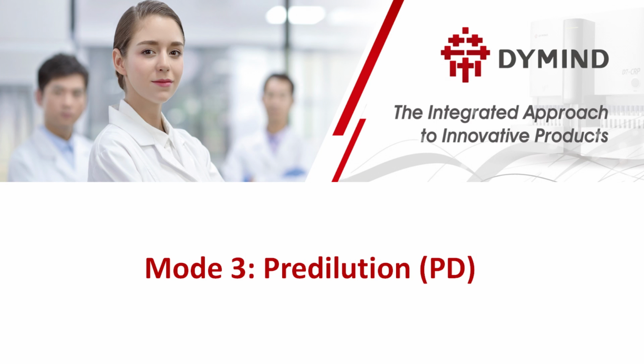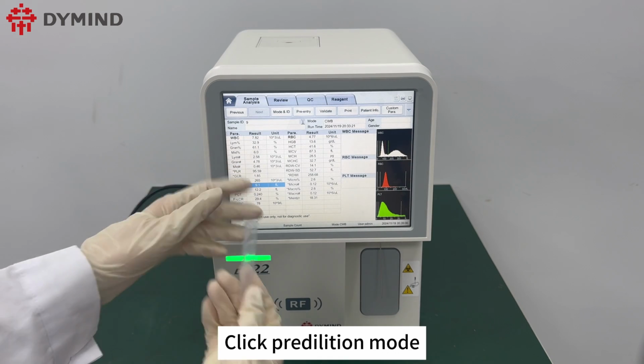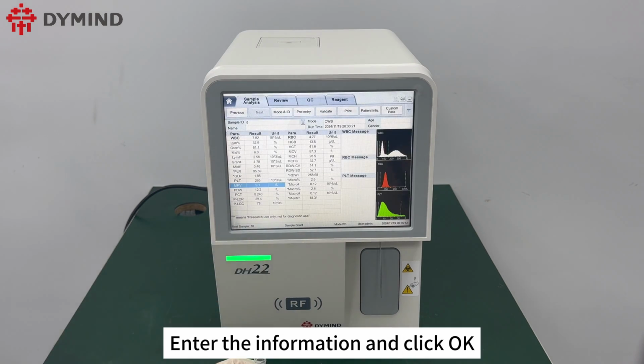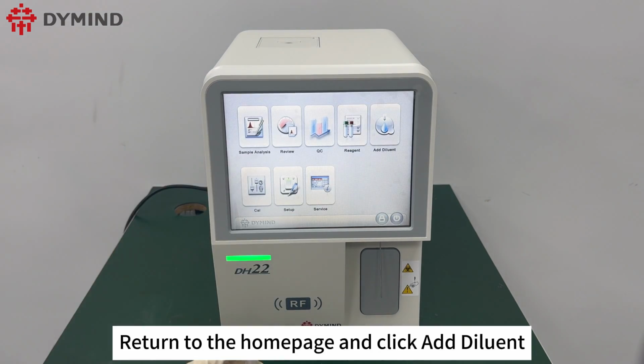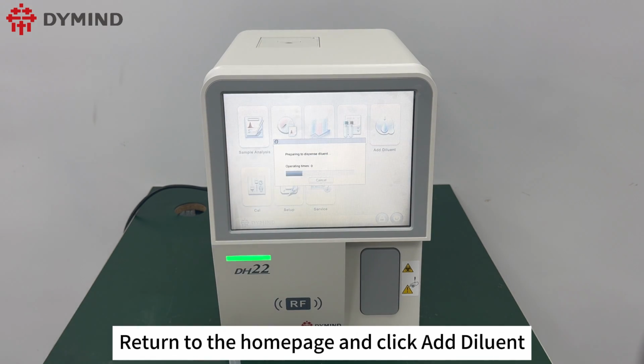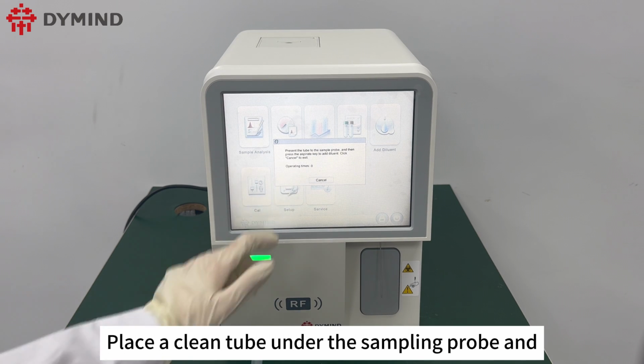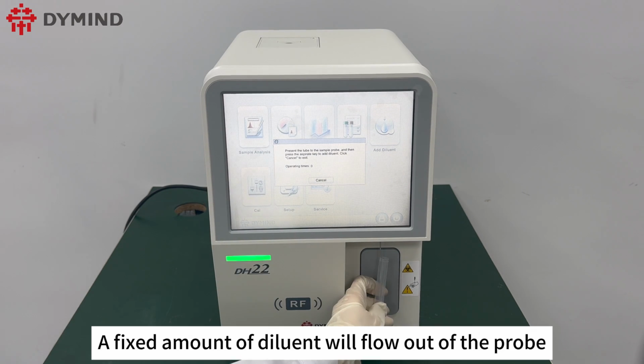Mode 3, Pre-dilution. Click pre-dilution mode, check the corresponding test mode, enter the information, and click OK. Return to the home page and click Add diluent. After the probe has been cleaned, place a clean tube under the sampling probe and click the button. A fixed amount of diluent will flow out of the probe.